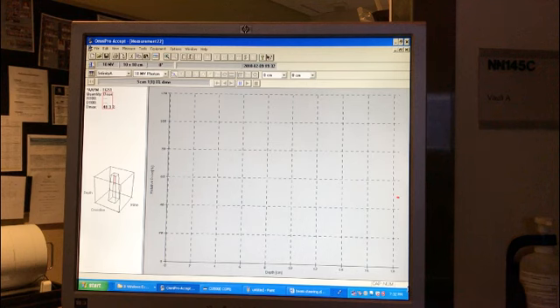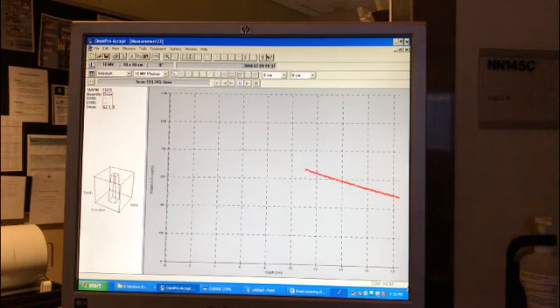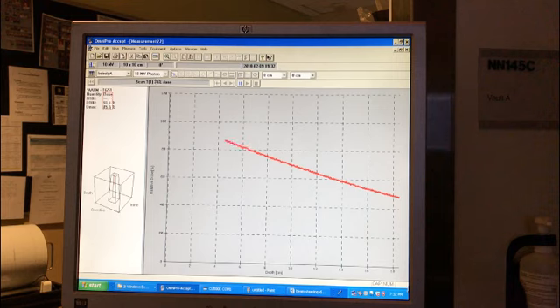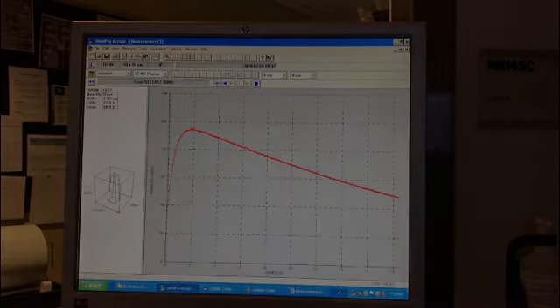Here we're outside the room and we're actually going to acquire data through that scan. You see the dose building up as you go from a deep depth to more shallow, in real time. The beam is on and running as you're doing this. You can scan not only with diodes but with chambers as well. Here I'm talking about diodes in this particular video. We're reaching up near D-max, getting near 100%, and now it's getting into the buildup region.